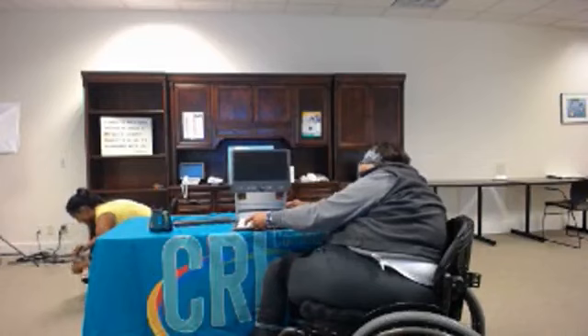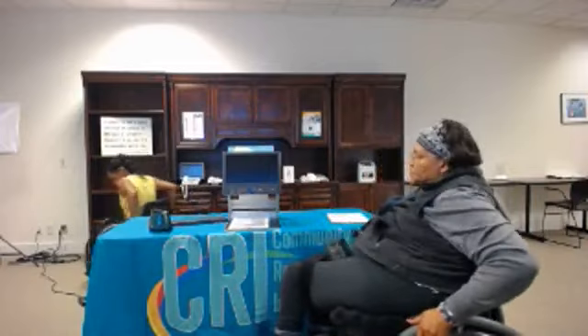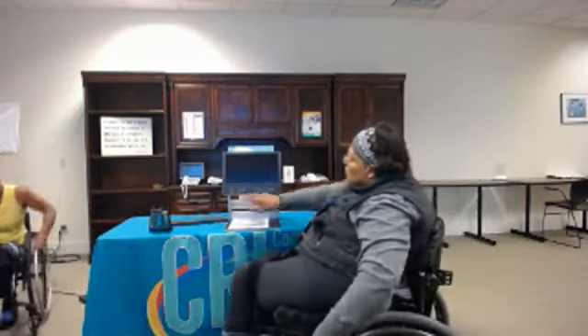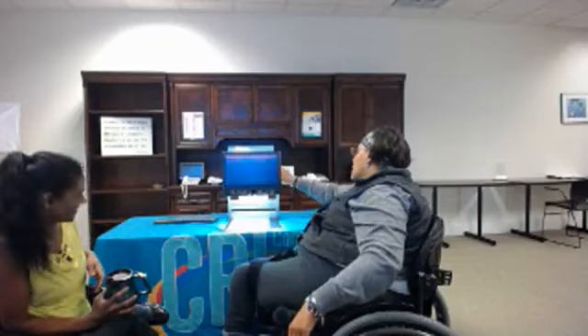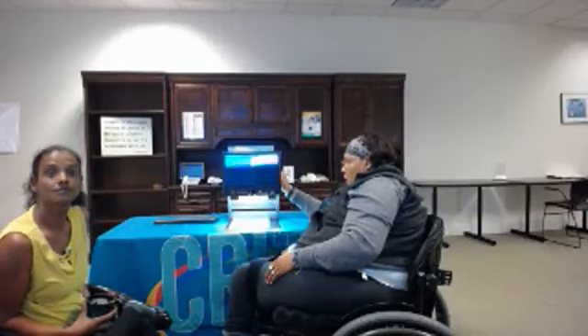You have the enhancer. Behind here is what I'm messing around with — the camera. There is the light on here where sometimes it can bother you; you don't have to use it. That's good for like cookbooks — you can see the fine print. It's also good for the newspaper too.